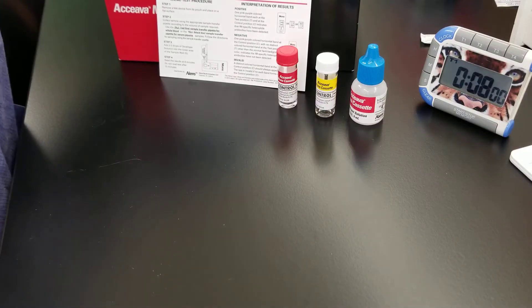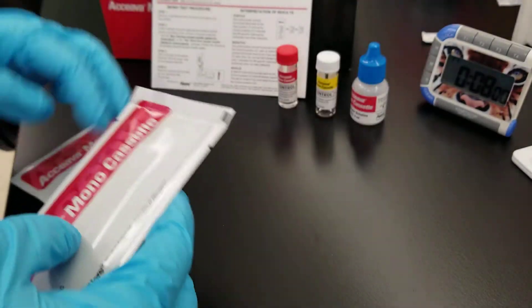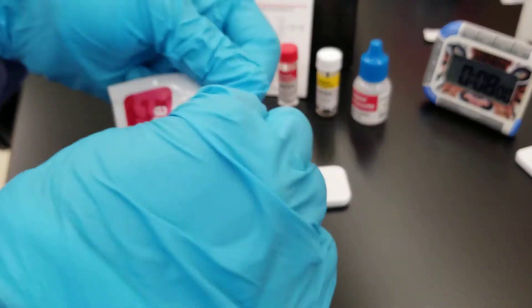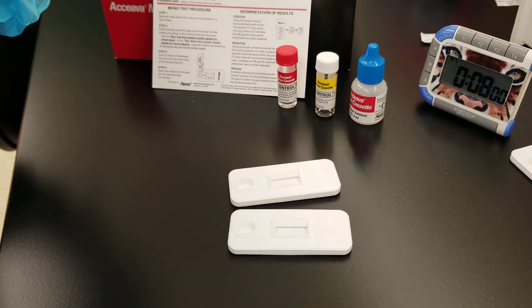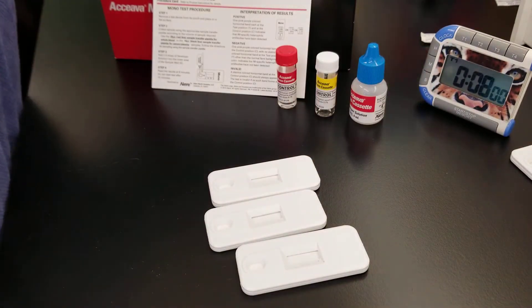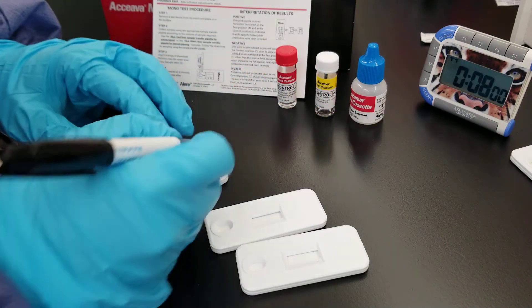Hello everyone, today we're doing the qualitative monoinfectious mononucleosis test. I'm pulling out my cartridges right here in order to do the positive and negative QC along with the patient. This is a waived test if you're using it for whole blood and a moderate complexity test using serum or plasma, and that is what we are going to be using. This is a test for antibodies to the Epstein-Barr virus.